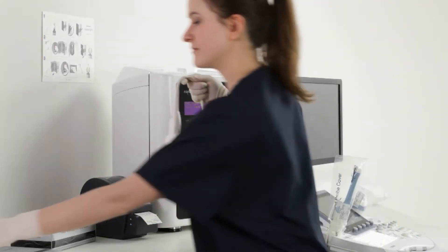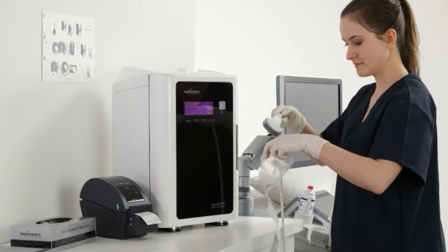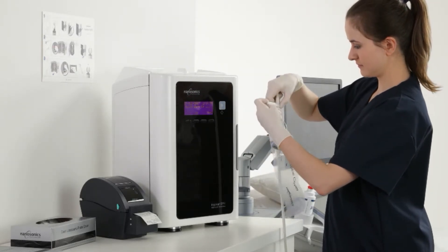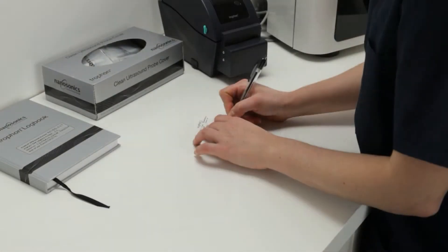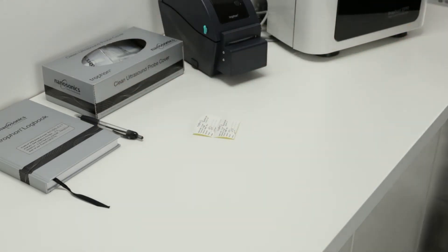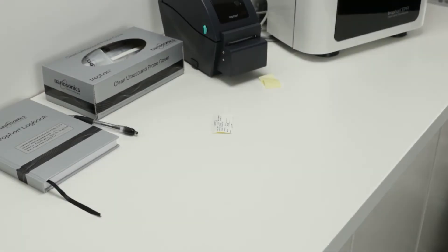Lightly wipe the probe with a drying wipe. Store the probe using a TROPHON Clean ultrasound probe cover. Insert the probe into the TROPHON probe cover and wrap the securing tie around the cable strain relief. Then place the covered probe on the console holder. Dispose of your gloves. Take the TROPHON printed labels and complete the required information. Take the probe from the console holder and place one of the printed labels on the TROPHON Clean ultrasound probe cover.